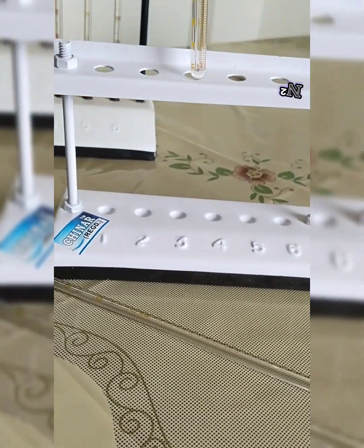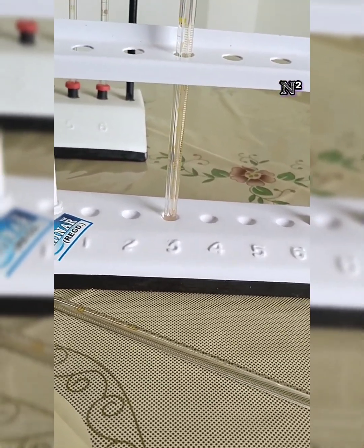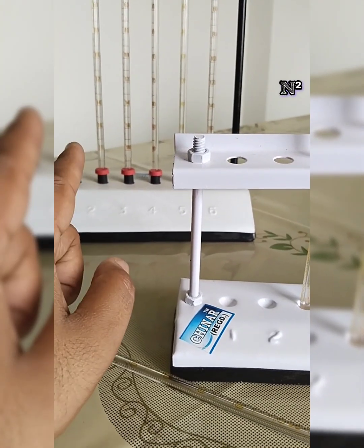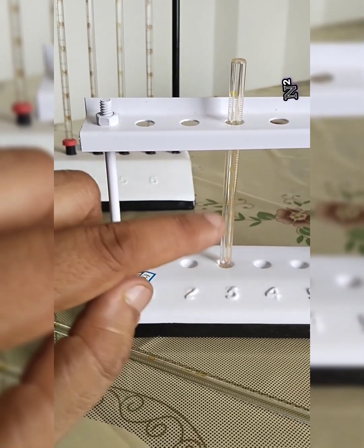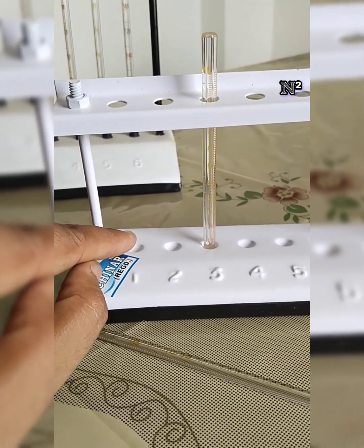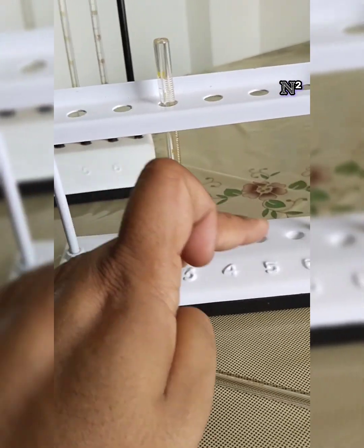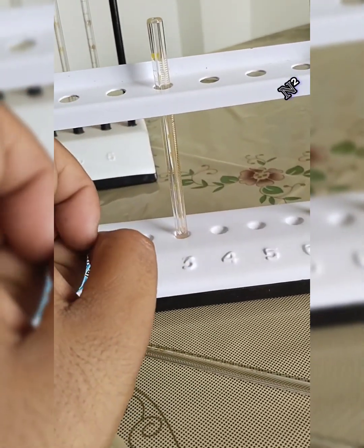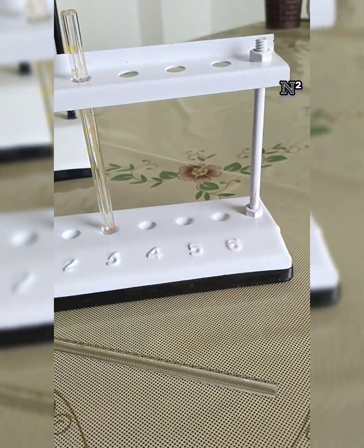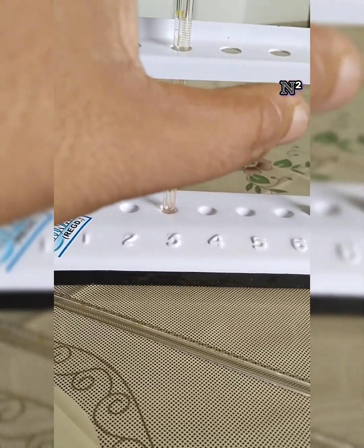Okay, so as you have kept this blood volume, whether you are doing the ESR experiment or the packed cell volume experiment, you then have to place this tube in a rack, just like the Westergren's pipette. There was a Westergren's stand, so for the Wintrobe's tube, we have a Wintrobe's stand. The Wintrobe's stand also has a base with exactly 6 slots. There are 2 vertical pillars over which the upper end of the rack is kept fixed.